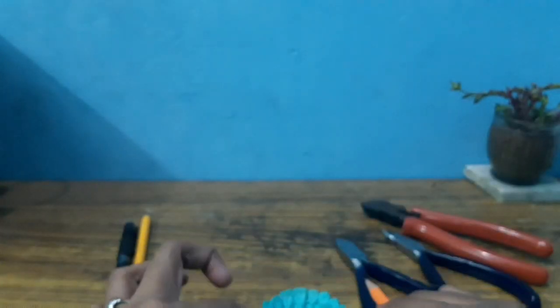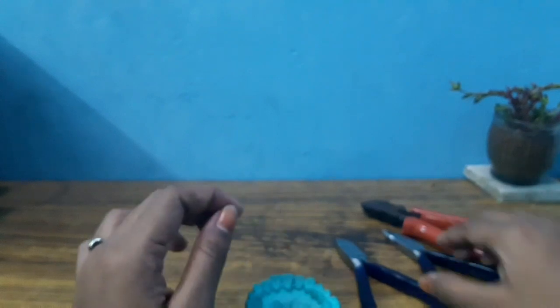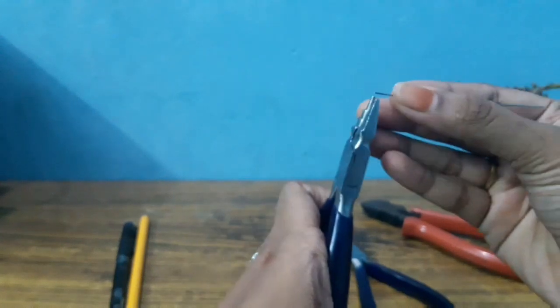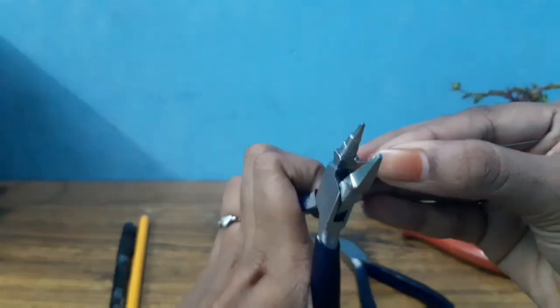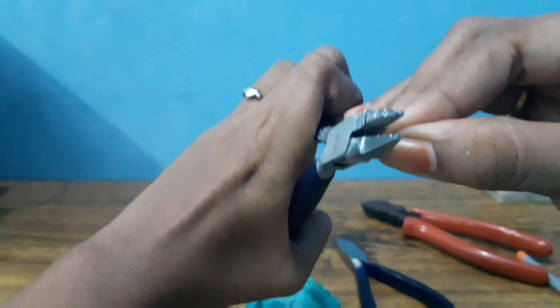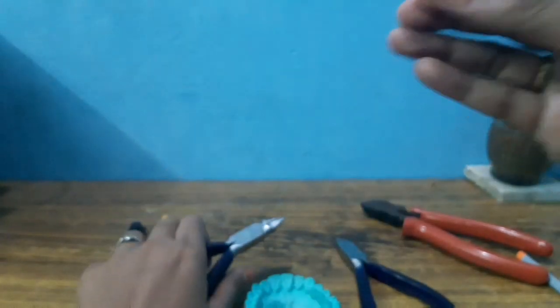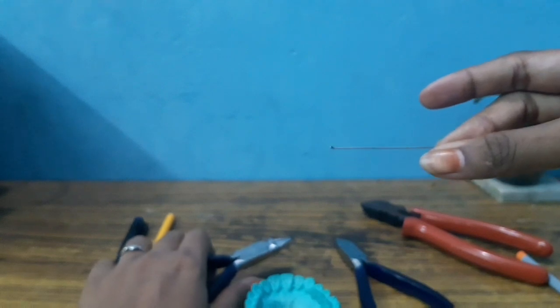What do we do in the next step? The first step is to take a tag. The edge is sharp and it can cause tissue impingement. In order to prevent that, we will make a tag. Make sure it is tightly closed and smaller. We will make a tag just to make it blunt — that is why we are making this tag.